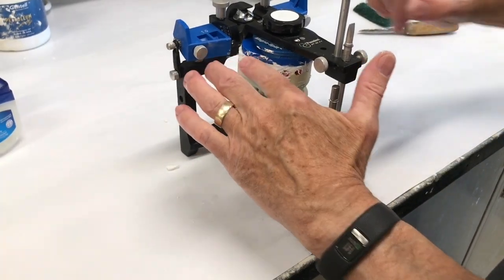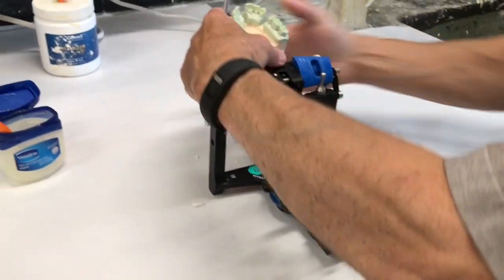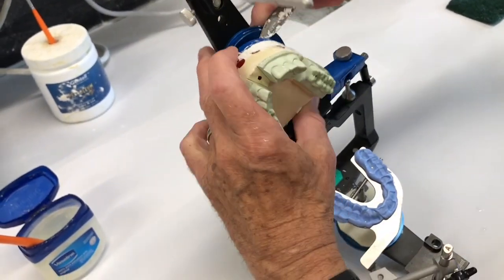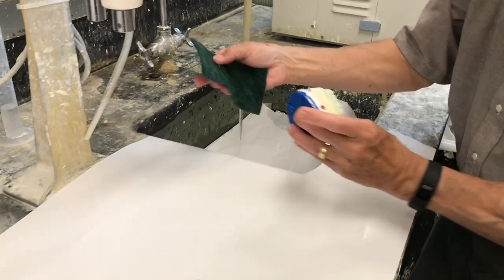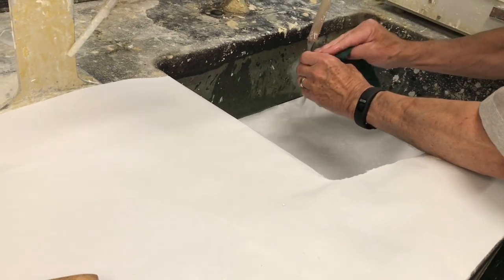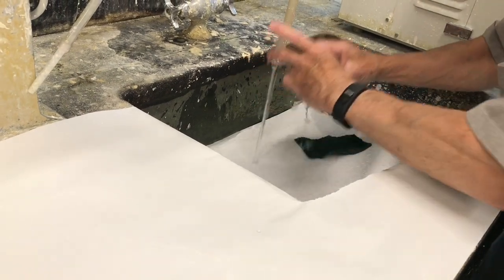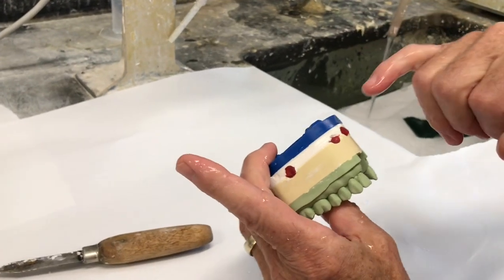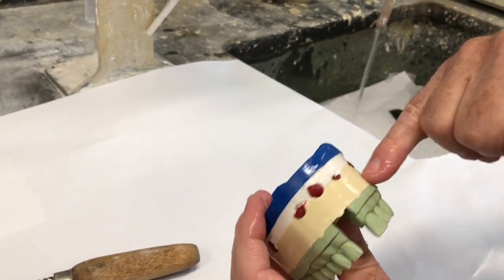Now I've got an initial set. It's not real soft, but it's not fully set. I can gently lift this up, right here in this little groove, stick my knife in there, and remove the magnet mount like that. From here I can go under the faucet, use a green scrubby and smooth that out. Once that's done, I'm going to take a number seven wax spatula and pull this wax out so we have access to the pins.